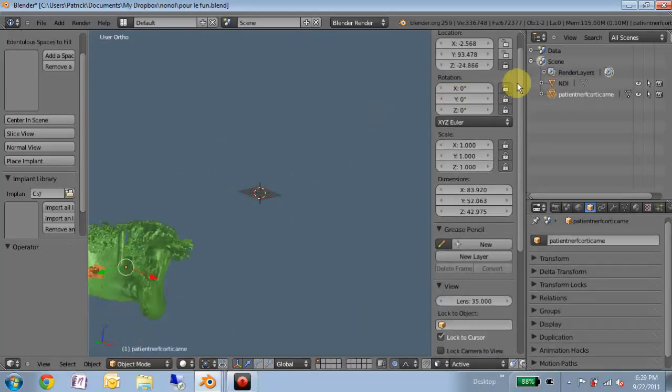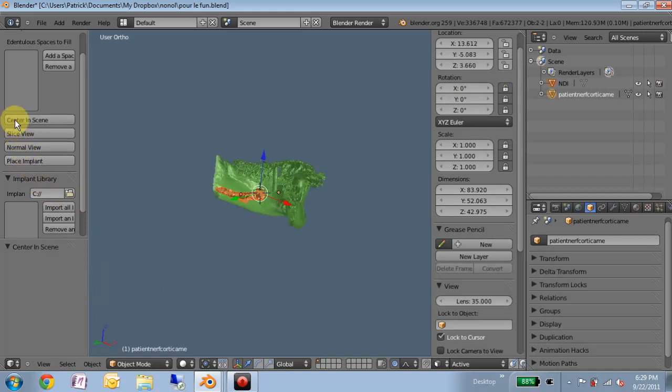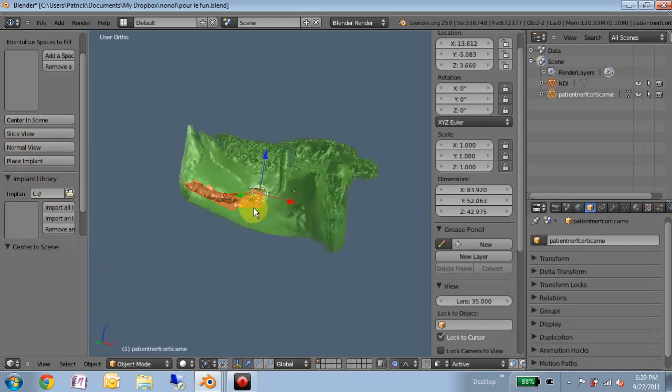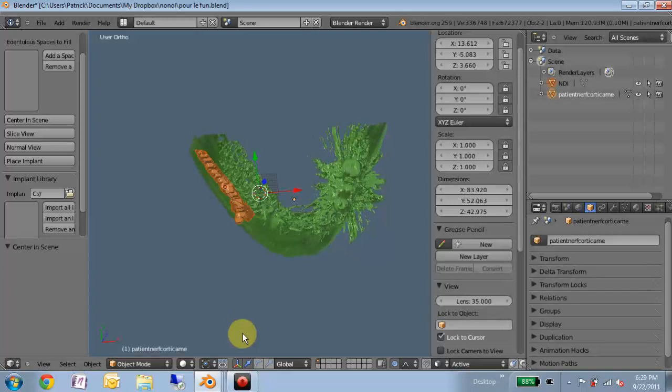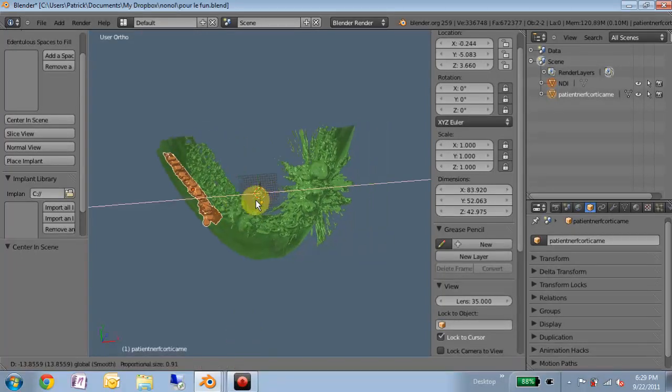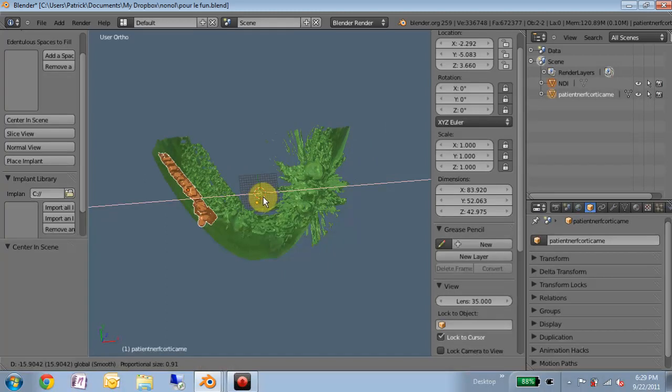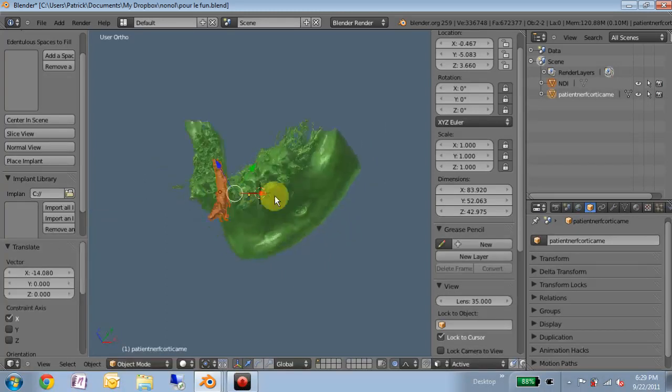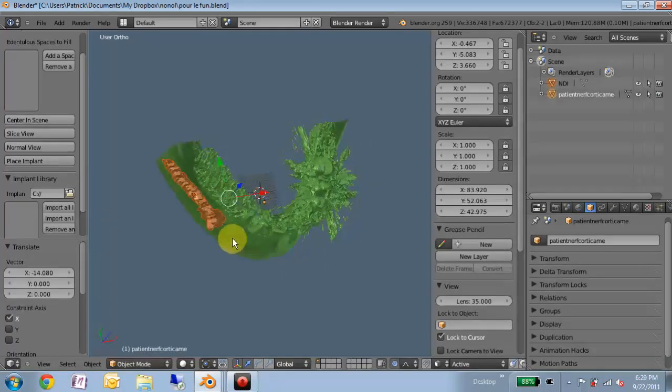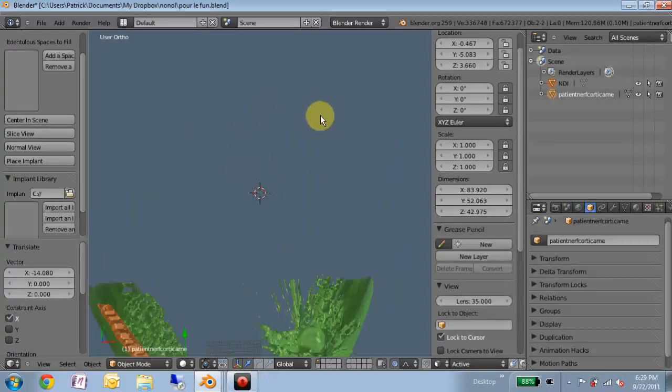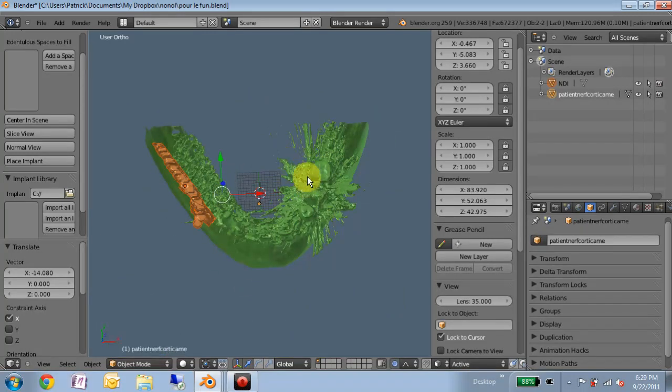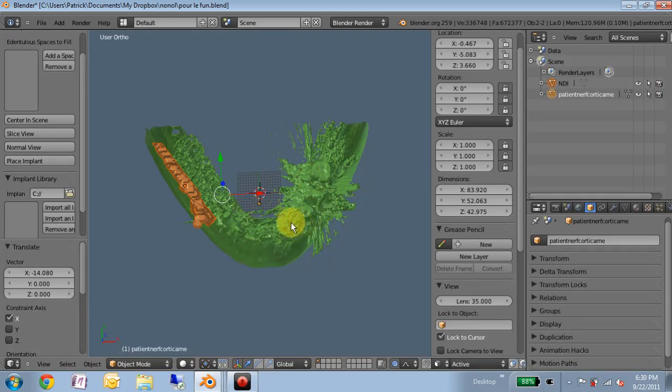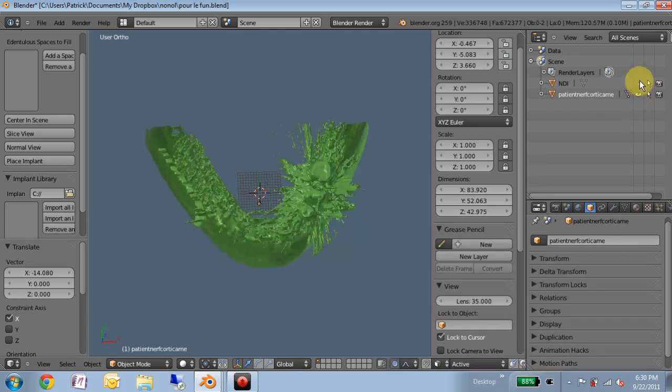Make sure that this is unlocked. Now, okay, good. So now all of our models are centered. It's just an average of their two positions. It leaves them both selected so we can move them to be more or less centered in the scene. This is not a huge deal, but it's just more convenient. Even if you're clicking around and you shift C to recenter you, you're in the area with your models. And you don't have to worry about any transform constraints caused by local view. If you want to limit what you're looking at, I suggest using the visibility icons over here.